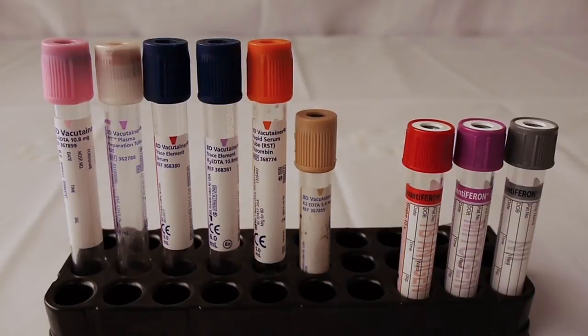Sometimes they need to be drawn by themselves, or sometimes the tests that have been ordered for these are single tests. So we don't usually consider these into the order of draw.